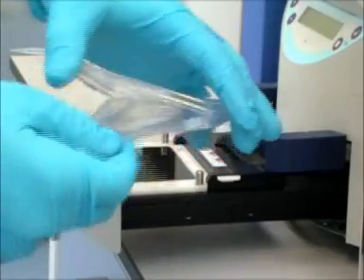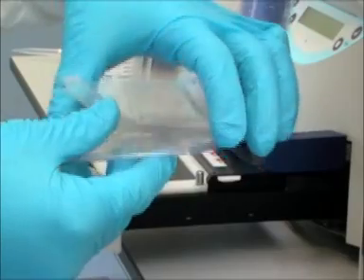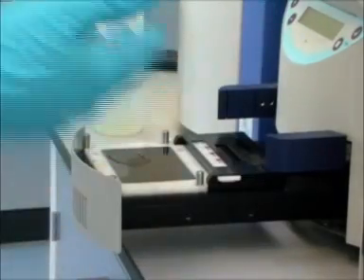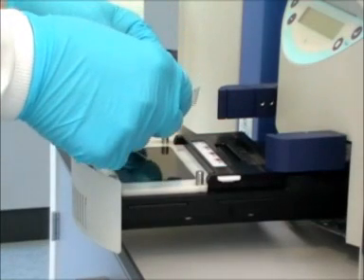The gel, in this case the acid haemoglobin gel, is removed from its protective foil and plastic pack and carefully lowered into position.